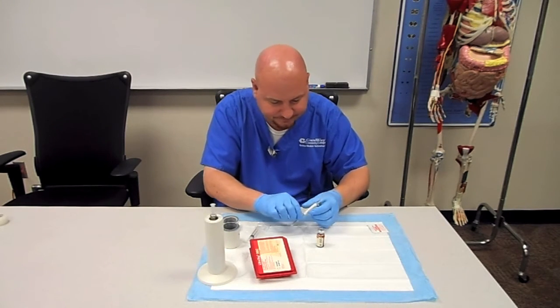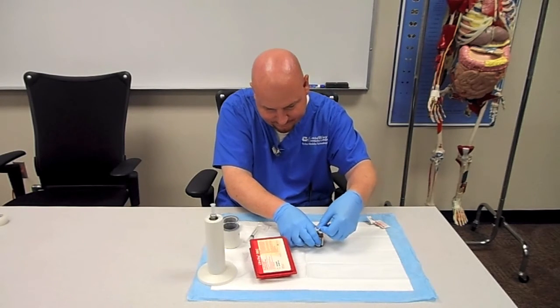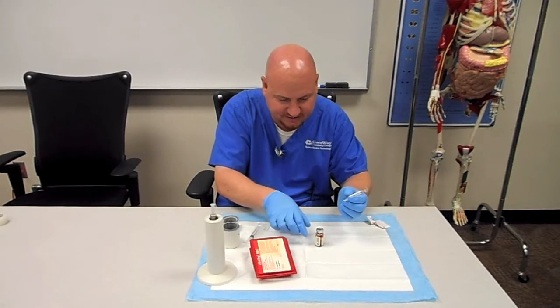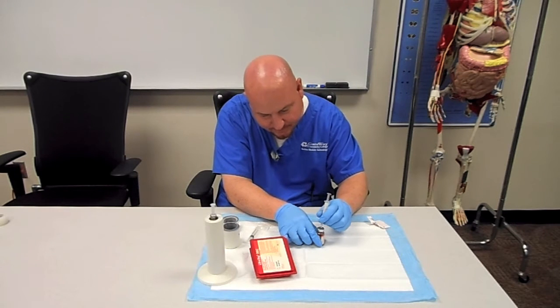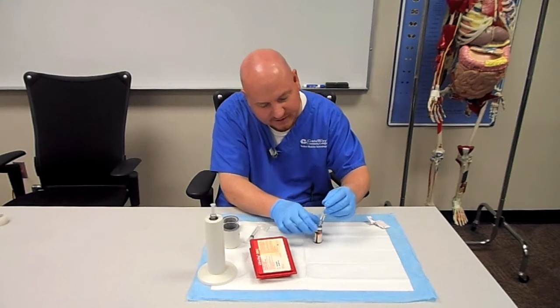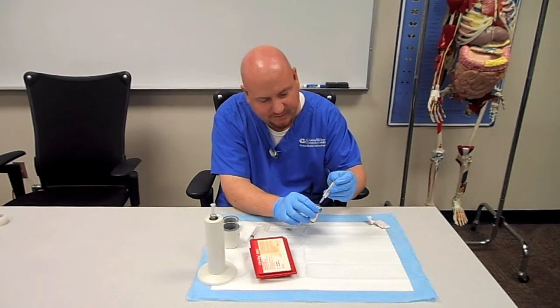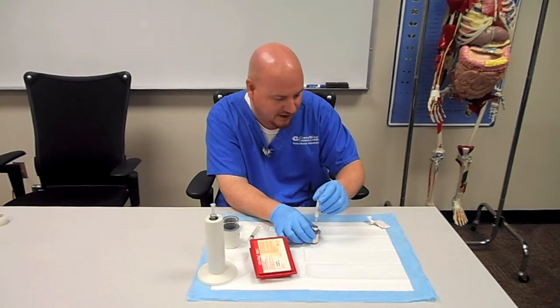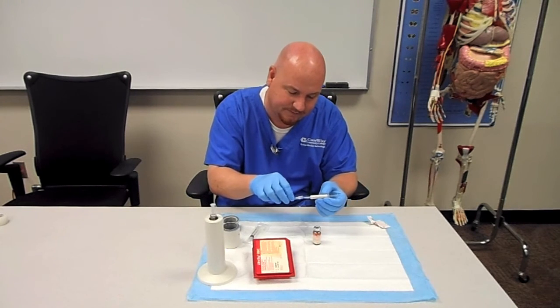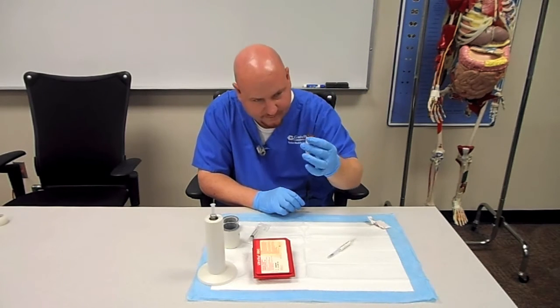Our five minutes is up. With syringe 1 ready to go, puncture the reaction vial — the cap is loose so it comes off easily. Push the contents down. Once the contents are in there, turn the syringe, pull the needle back up a little bit, and pull out that extra air to make up for the volume I've just injected. That way we won't have any build-up of pressure so it won't accidentally splash blood back on me. Gently invert the contents of the vial four to five times.